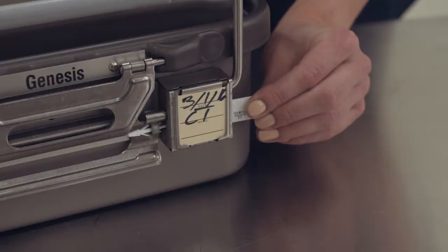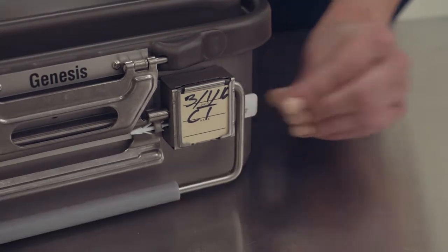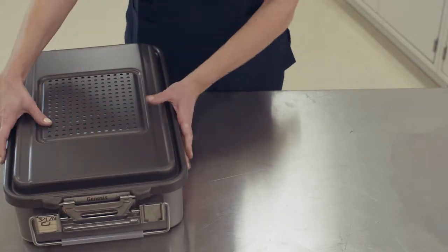Grasp the arrow end with the indicator dot and gently pull back on the arrow to ensure that it is correctly placed and secure. Repeat this process for the other side of the container.